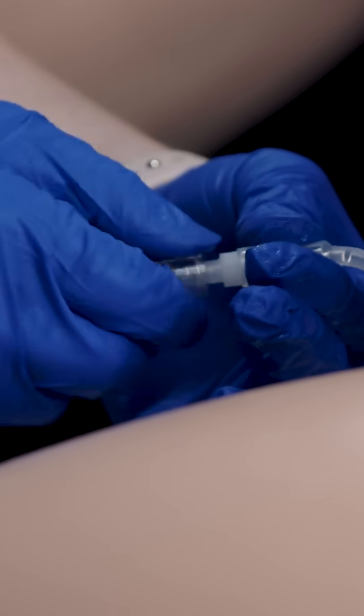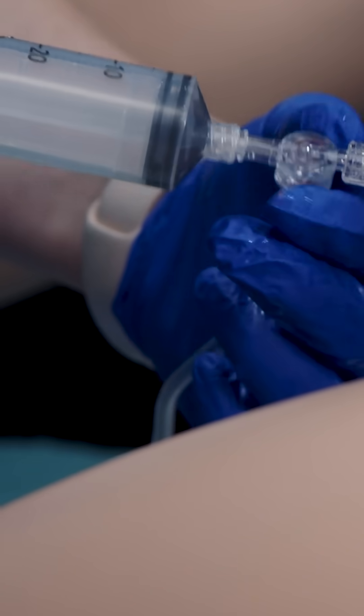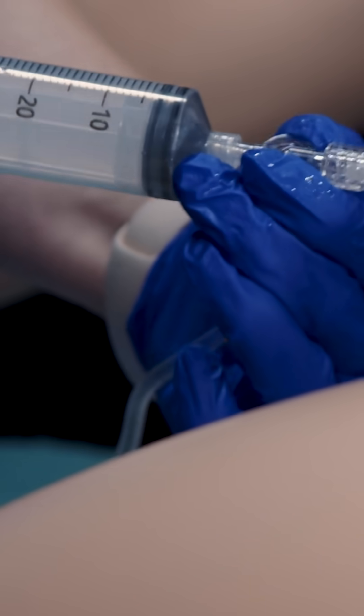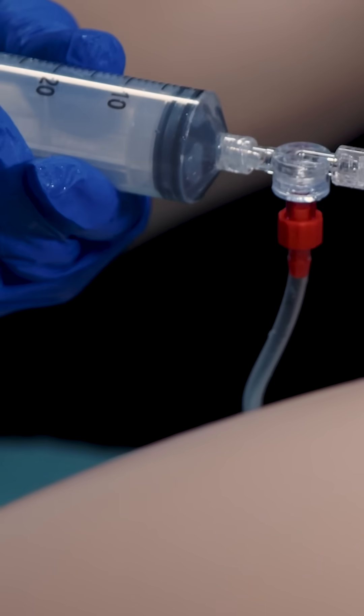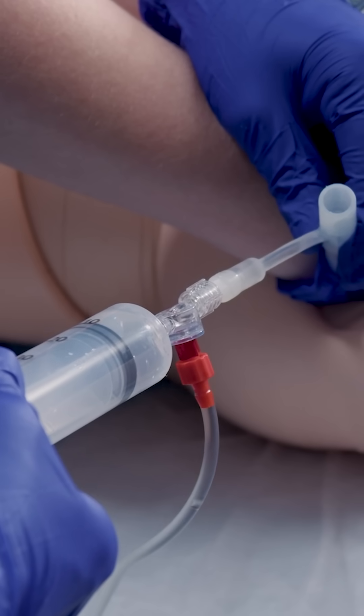This here is a one-way valve. Using the same 50 ml syringe, we're going to connect immediately to the device, and that should automatically draw up your fluid.